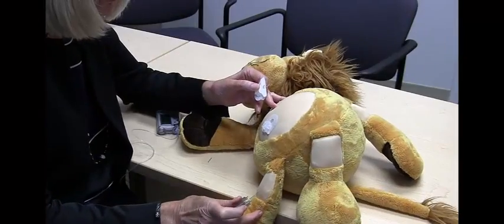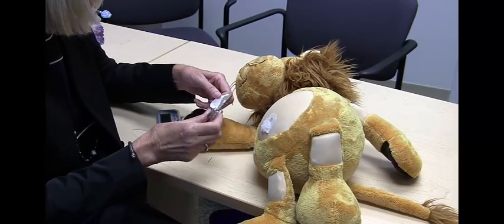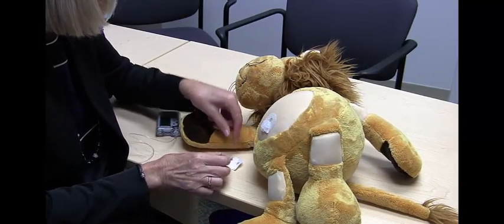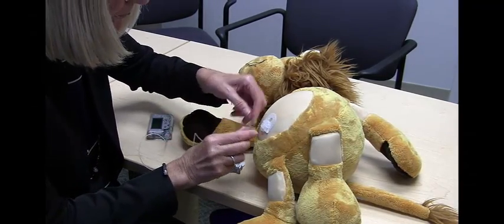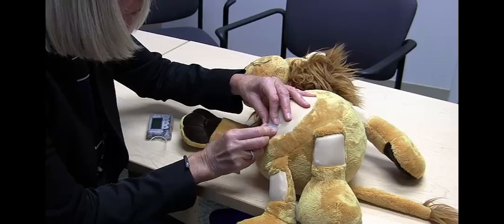So our lion here has had a site inserted and that will then be connected to the pump here like that.